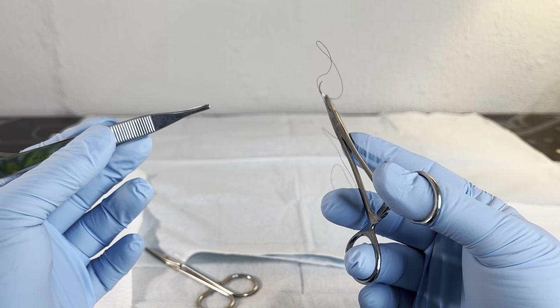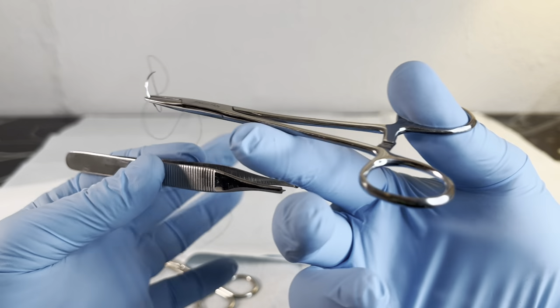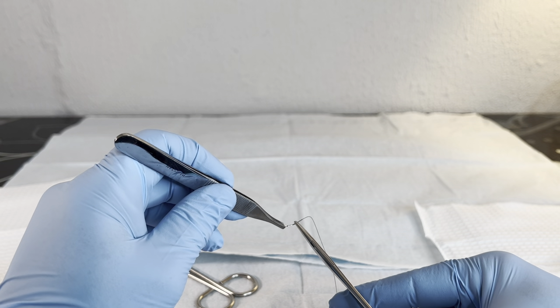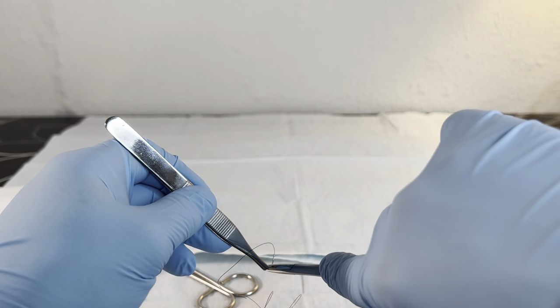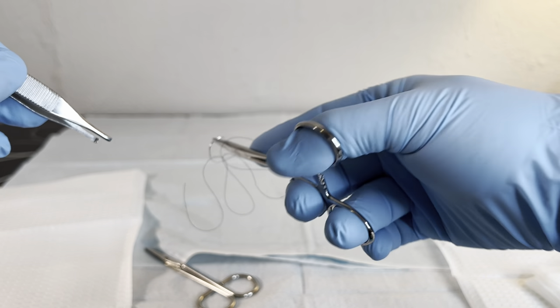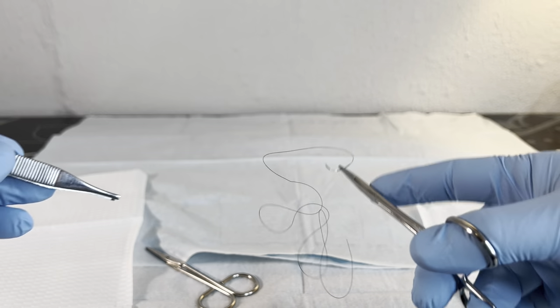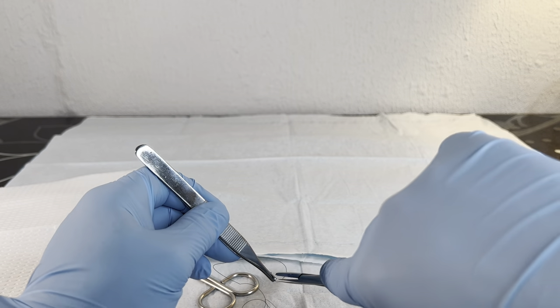This is a super simple, easy-to-overlook aspect of suturing that I think the more you pay in beforehand, the more it will pay out to you and your patients moving forward. Simply getting comfortable with grabbing, release, regrabbing at the alternate angle, and practicing that twisting motion that you would use pulling it through the edge of the wound, coming back as if you've pulled out, grabbing, and reclamping. Just really getting comfortable with that series of movements again and again.